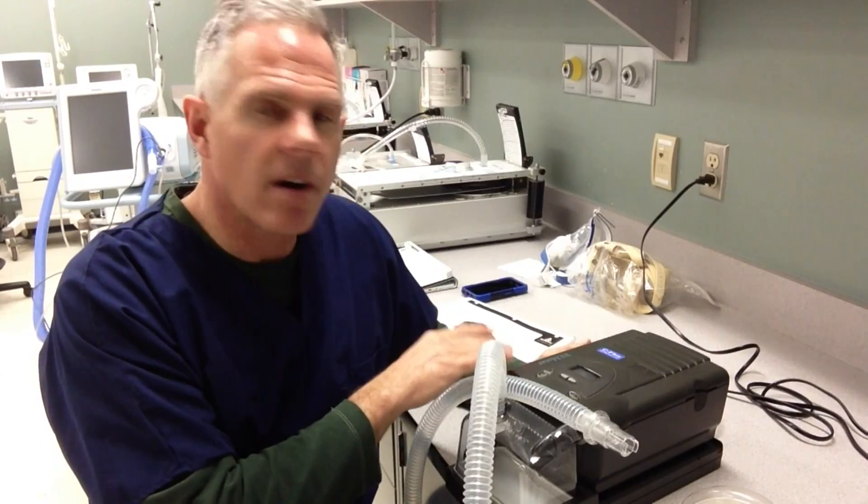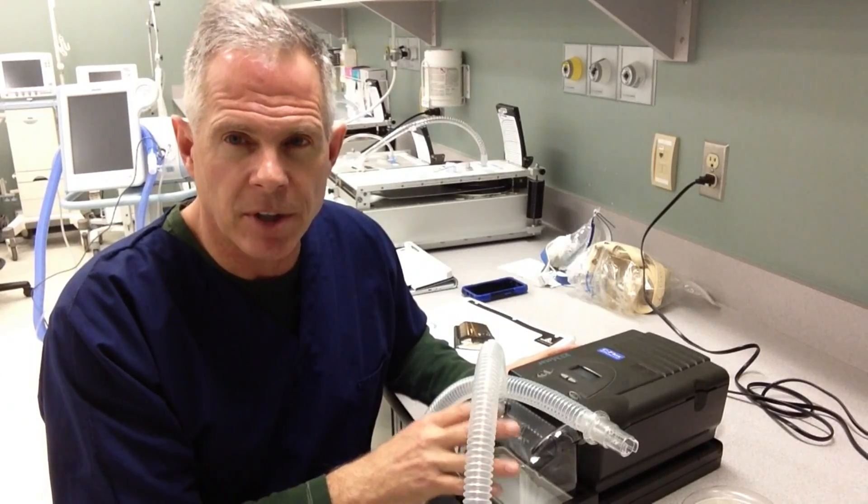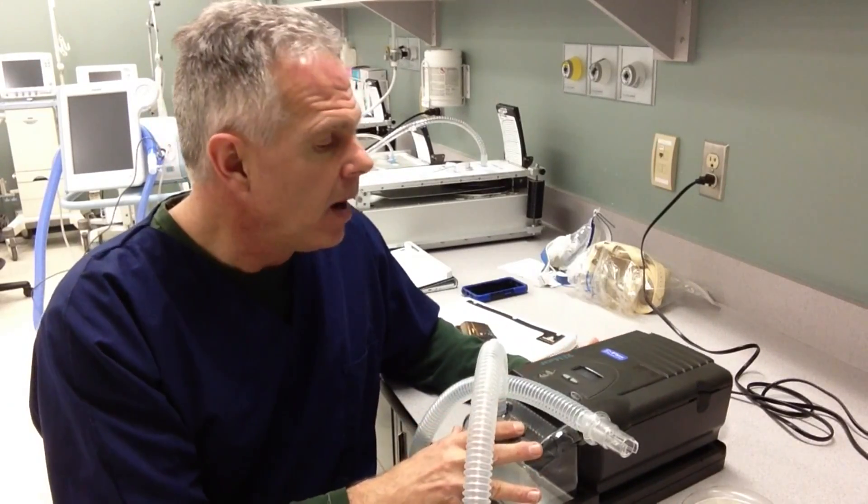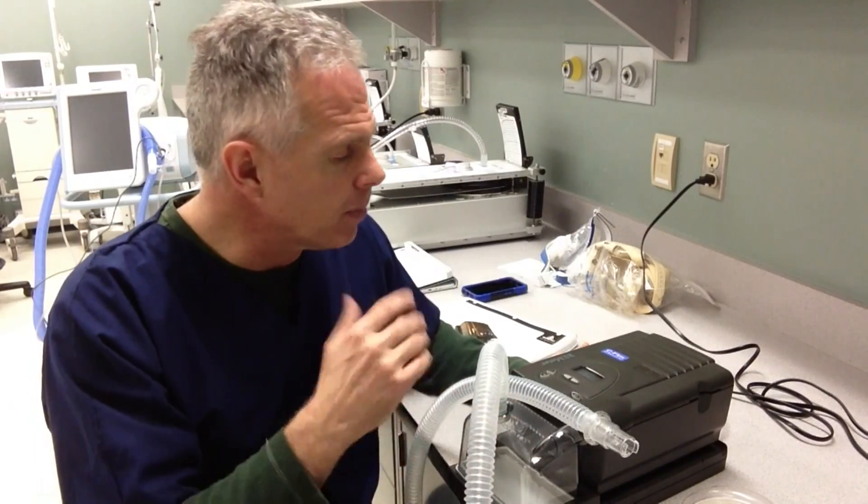Hello, my name is Alan Prost and I'm going to give you a little bit of a demonstration on the Remstar Auto CPAP machine. This is a machine specifically designed to deliver CPAP to patients, usually while they're at home. We have some of these in the hospital and we do use them on the floors and other areas of the hospital, for patients who require a little bit of CPAP support either for oxygenation or to prevent obstructive sleep apnea.